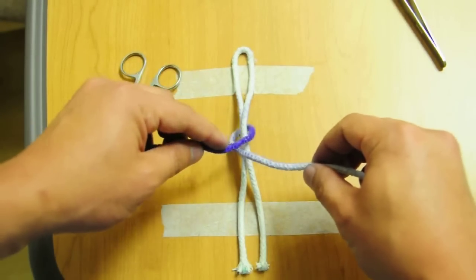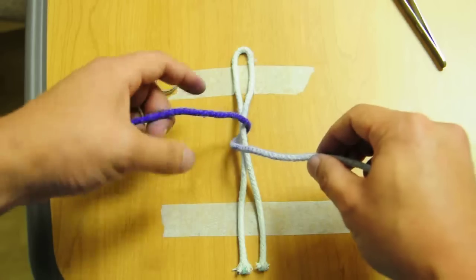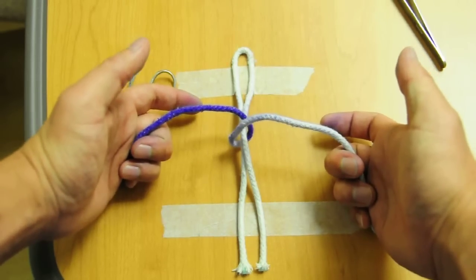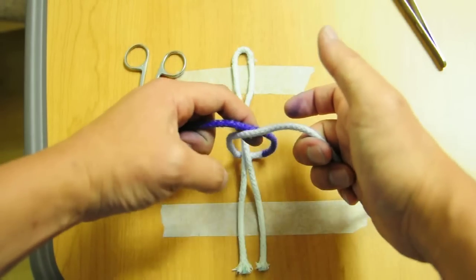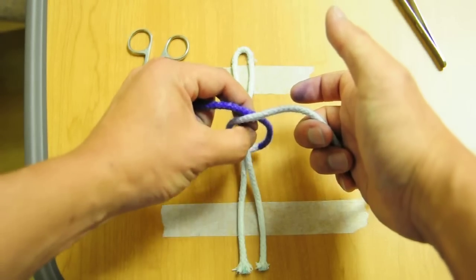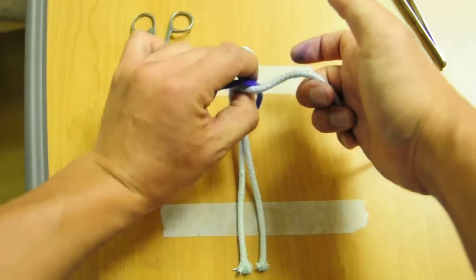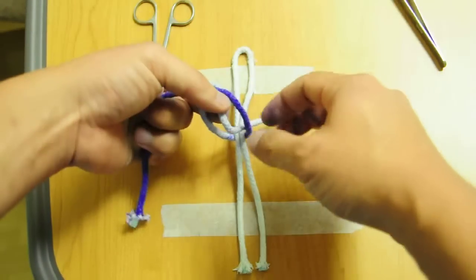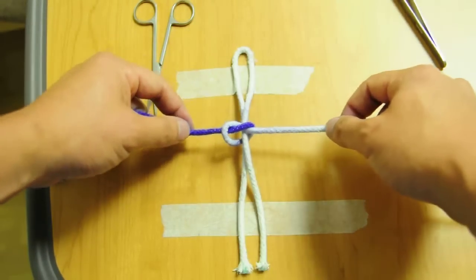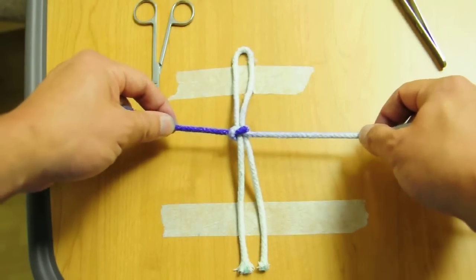If this purple strand is over, go and start over. So remember your over tie is done with your index finger, so your index finger pushes across, make a loop, close the circle with your index finger and thumb, come to the other side, grab it, push it through, lay it flat. Very simple.